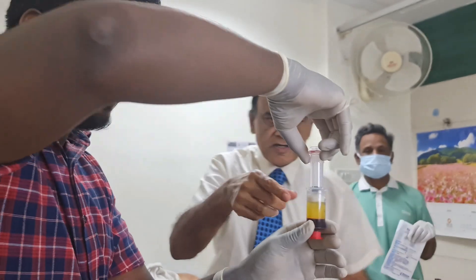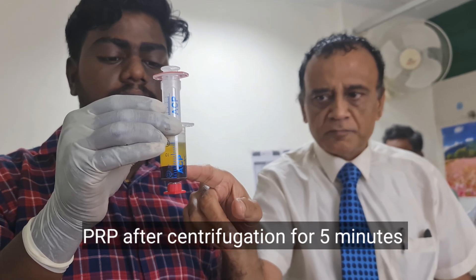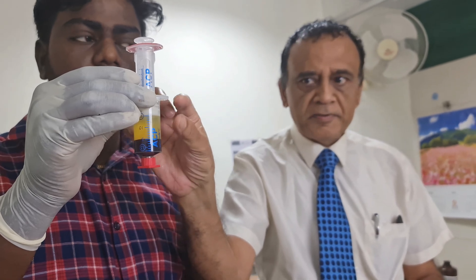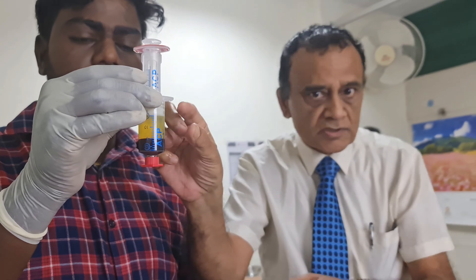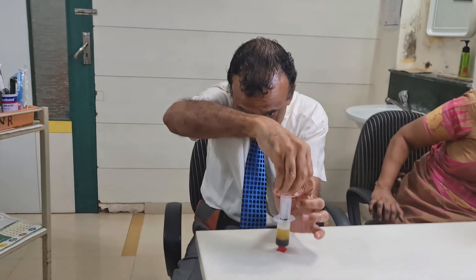This is super PRP. We were very careful to remove the blood — ideal color PRP. This is the portion of the blood containing red cells. Here, this supernatant fluid is PRP, amber color. This is how it should be. Now we are going to withdraw this PRP into the inner syringe.